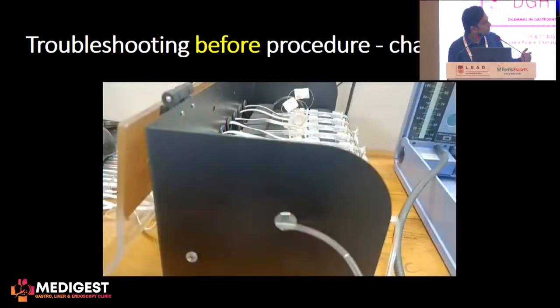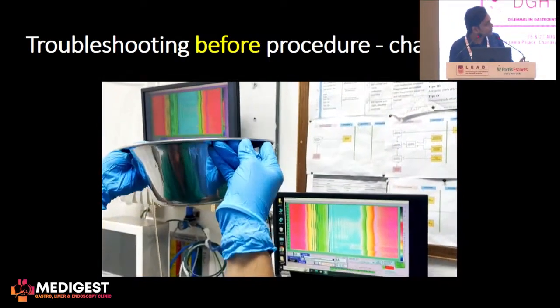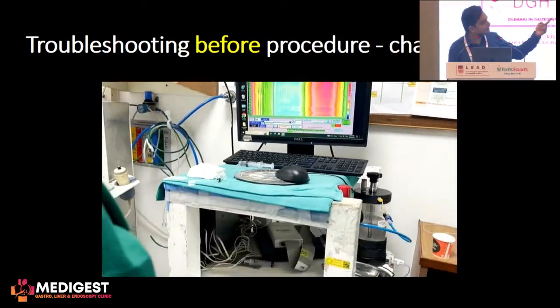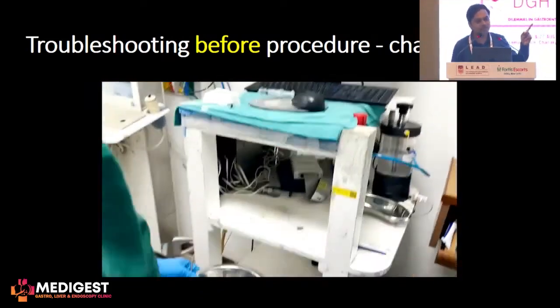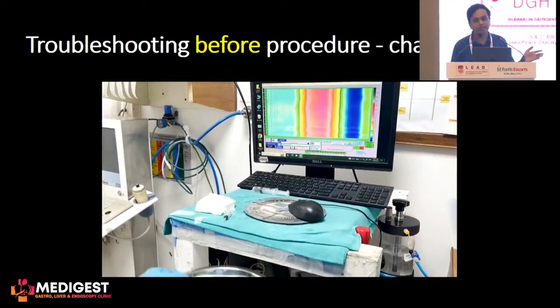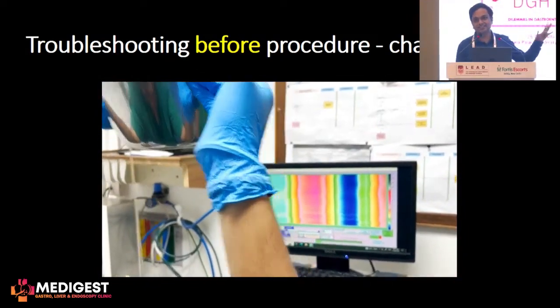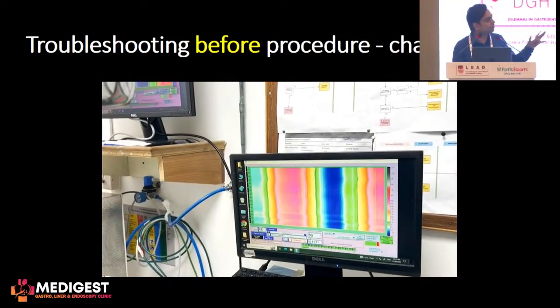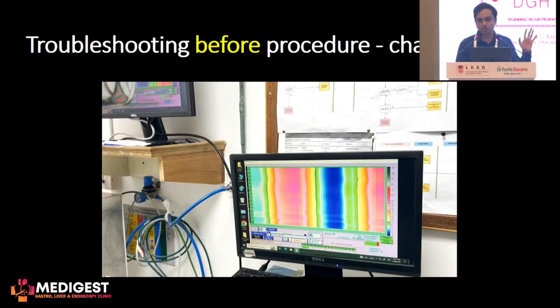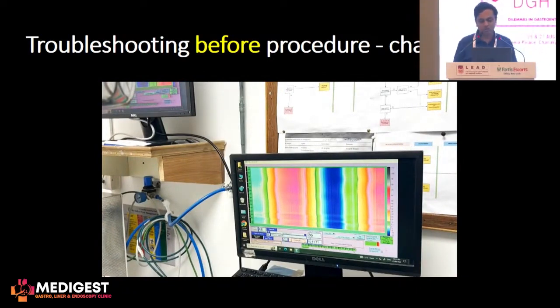When you lift the catheter and then bring it back down, you should see the same colors in all the channels. This confirms a correctly set system before you proceed with the manometry. You should always ensure this is done before you start off with the process.